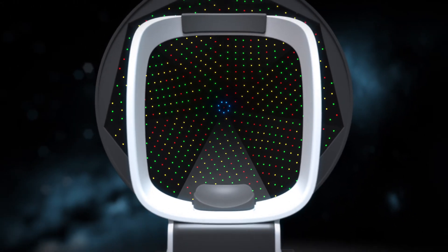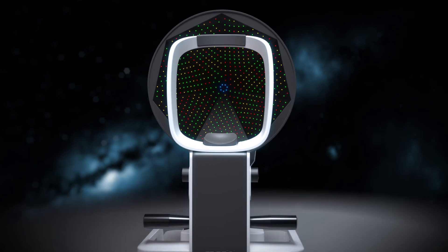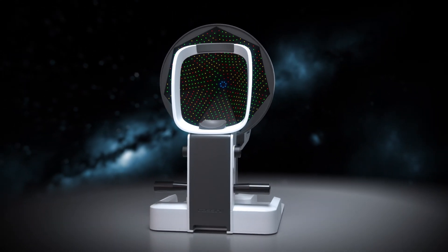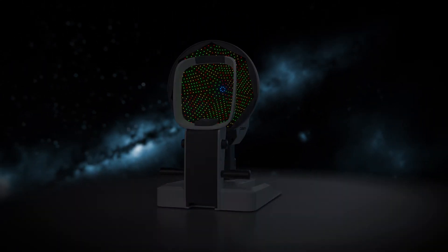This is how Cassini, as innovative and progressive thought leaders in collaboration with vision care partners, strive to empower surgeons with the speed, efficiency and accuracy needed to make confident decisions for optimal outcomes.